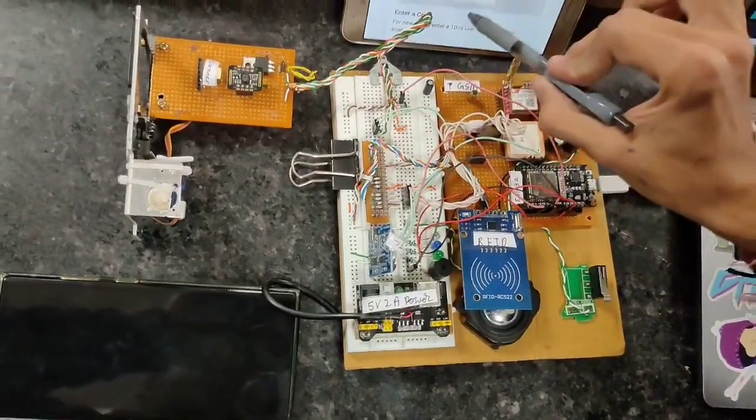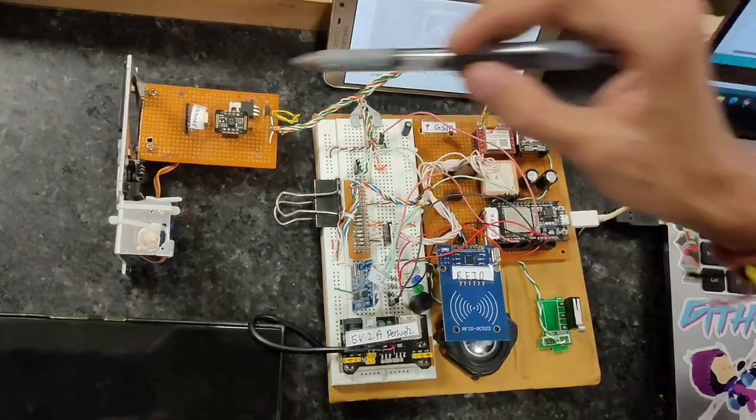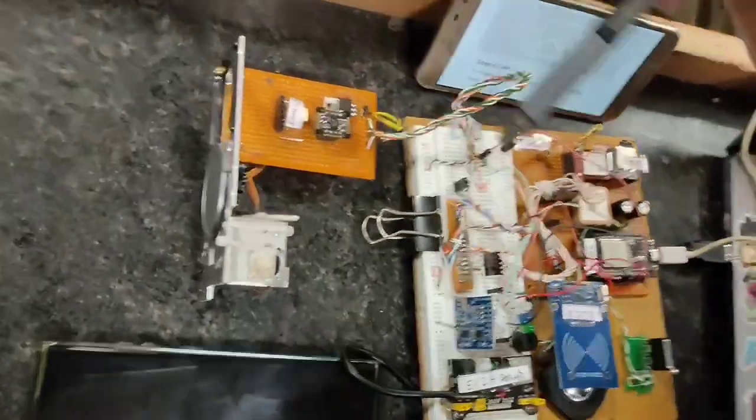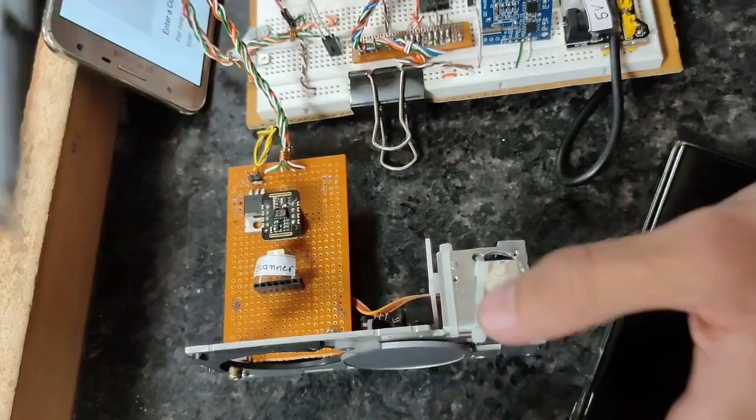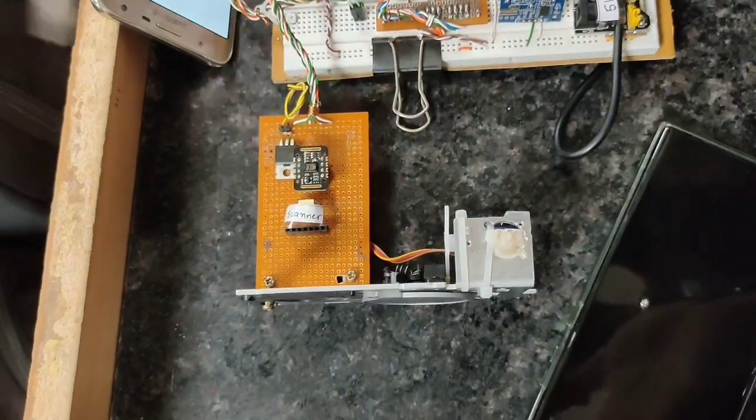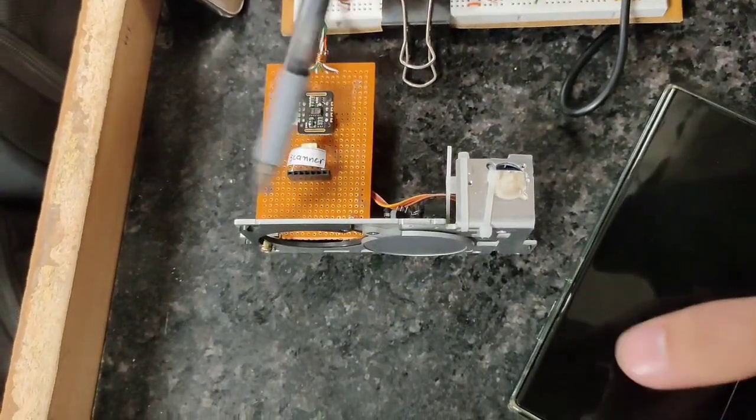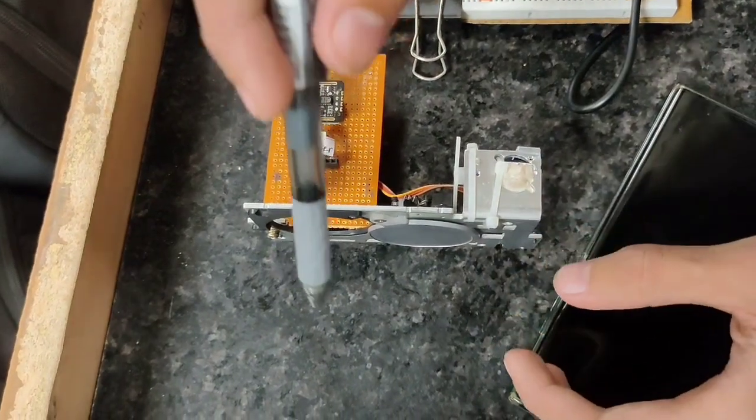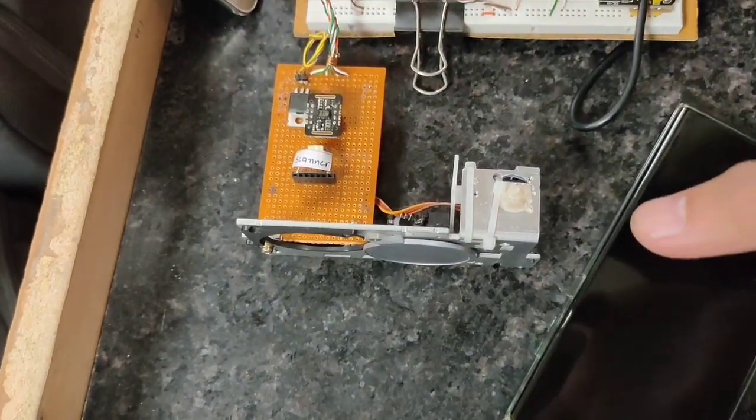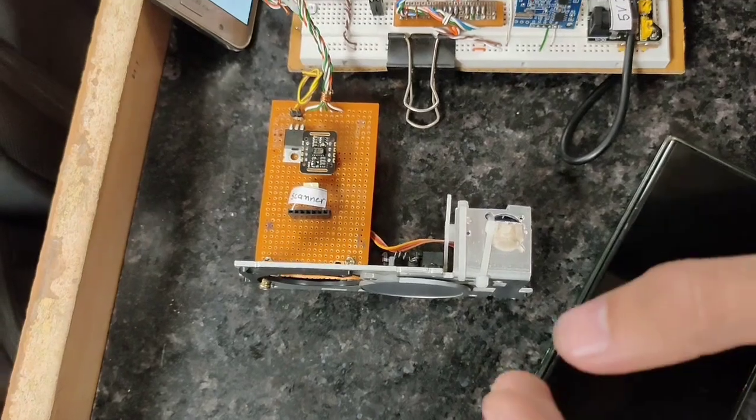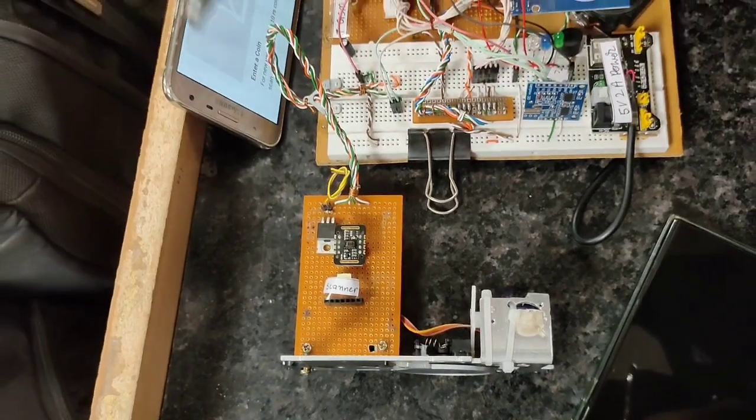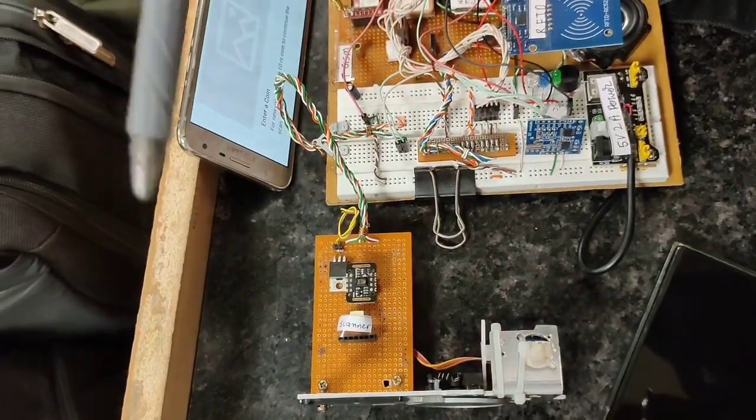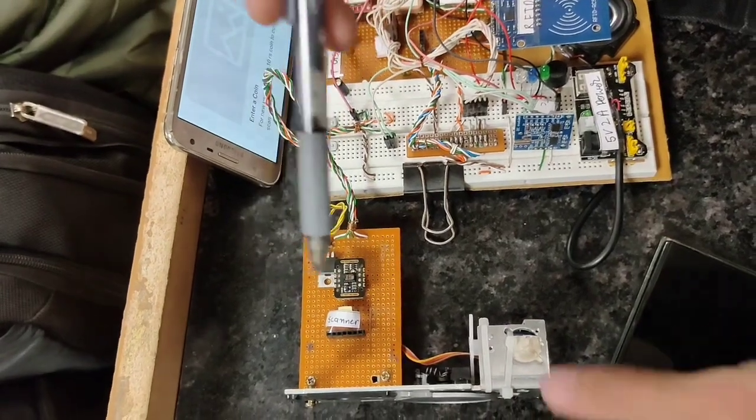Now we opened this door. We salvaged it from an old projector. The purpose of this door is to encapsulate the sensor from outside. It will be placed in public places, so there are multiple things which can affect the sensor and its accuracy - dust, water. To prevent this we used this door.